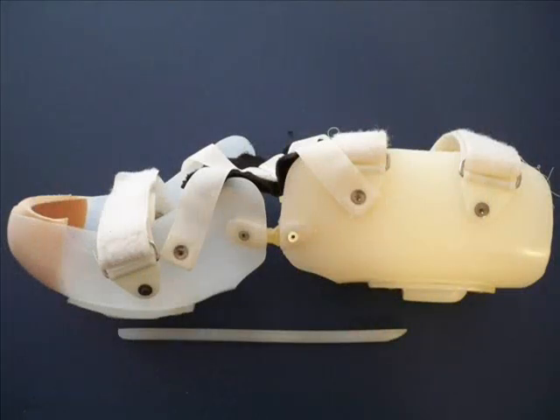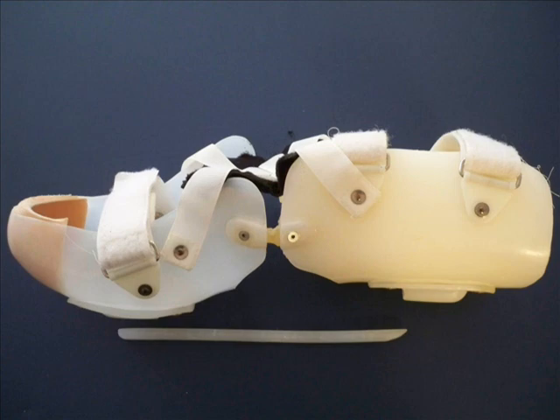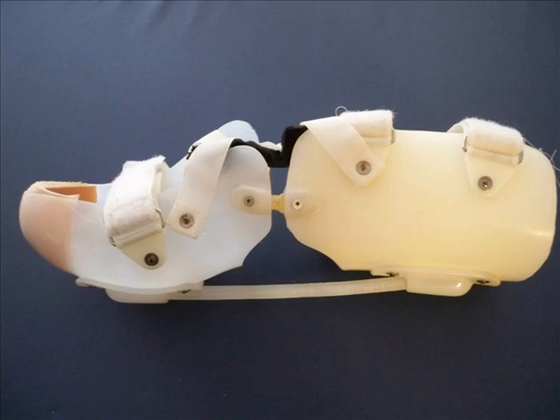Orthoses can also be used to help stretch contractures. This orthosis was custom made for a man who had a transtibial amputation and developed a knee flexion contracture. The portion on the right is a thigh cuff connected by a hinge to the leg portion on the left, which is shaped like a residual limb. A plastic bar is attached to the two parts to hold the knee in extension. As the knee flexion contracture is stretched, the bar is lengthened to hold the knee in even more extension. This technique is called serial bracing.